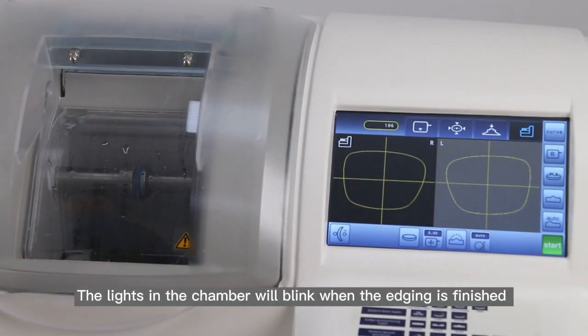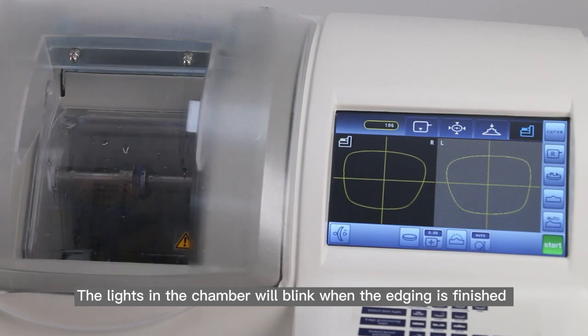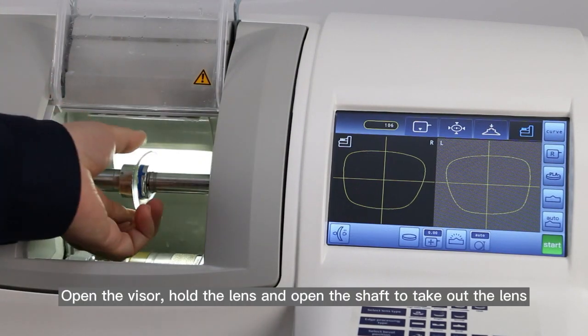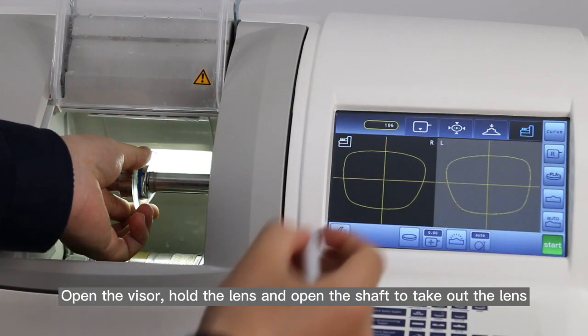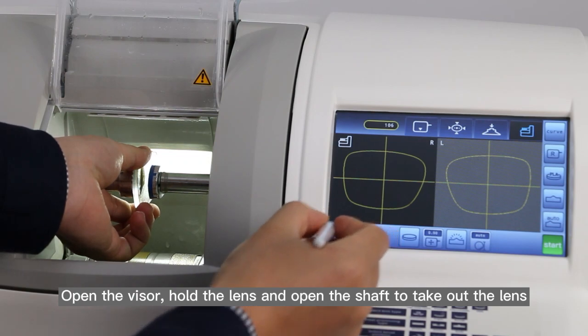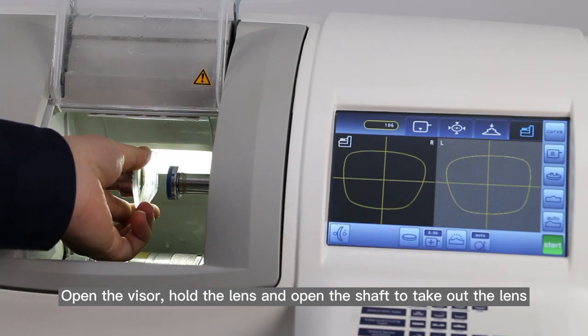The lights in the chamber will blink when the edging is finished. Open the visor, hold the lens and open the shaft to take out the lens.